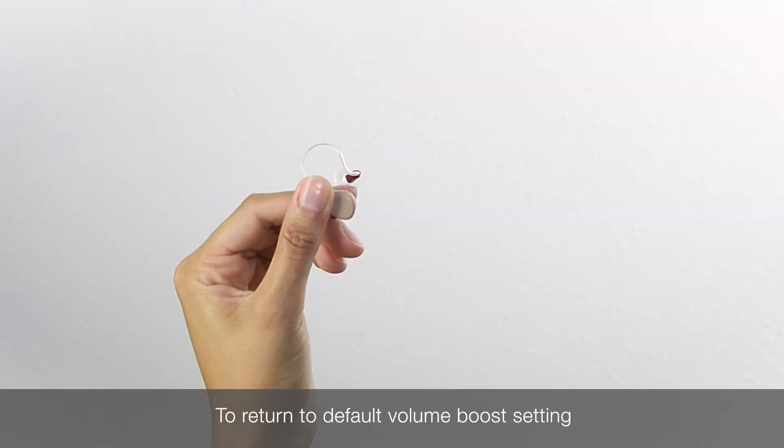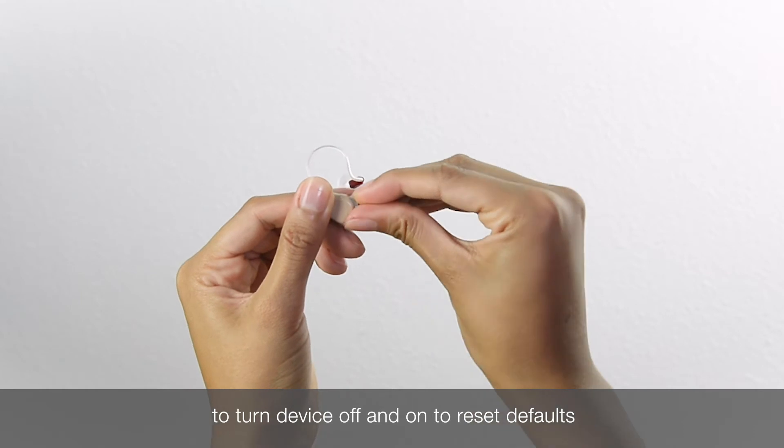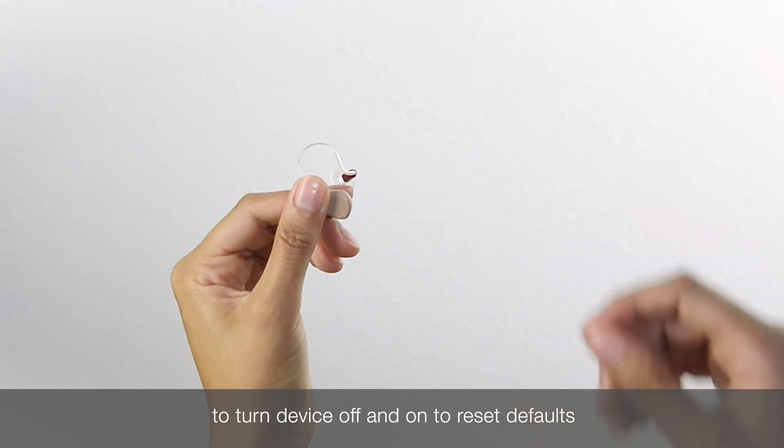To return to default volume boost setting, you must open and shut the battery door to turn your device off and on to reset defaults.